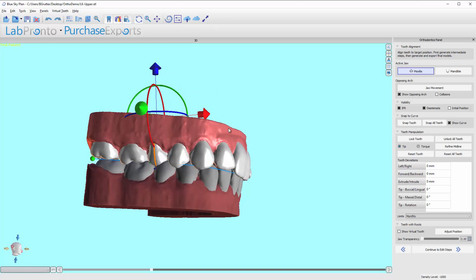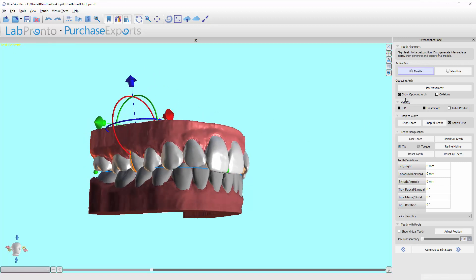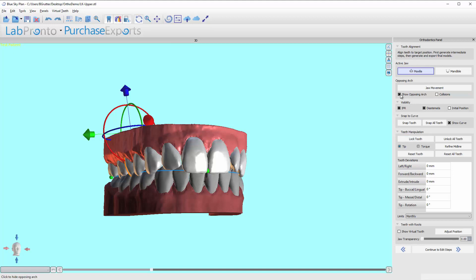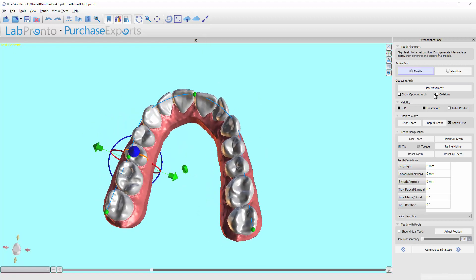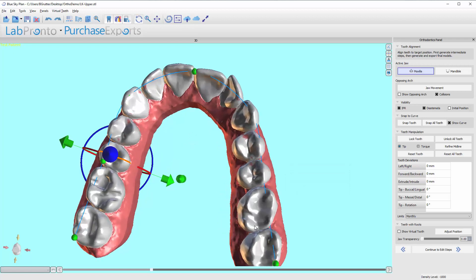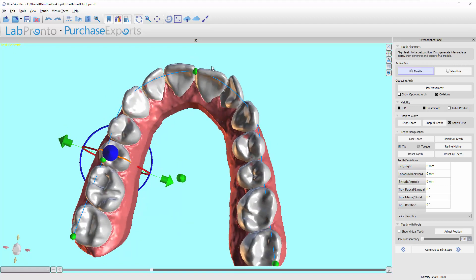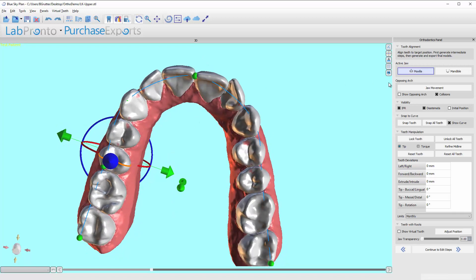Now I'm going to walk you through what all the buttons over here do. First, 'Show Opposing Arch' — click on this and the opposing arch hides. If I click on 'Collisions,' it's going to show me the occlusal contacts and light contacts throughout the arch. This is based on a digital scan — this is where she has occlusion — so when final we're going to want to have similarly red markings. I'm going to turn that off because constantly calculating it can slow things down.